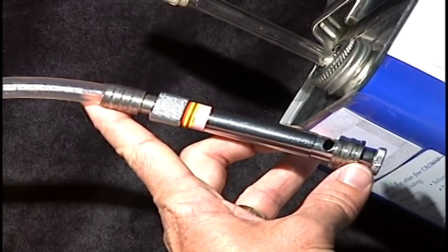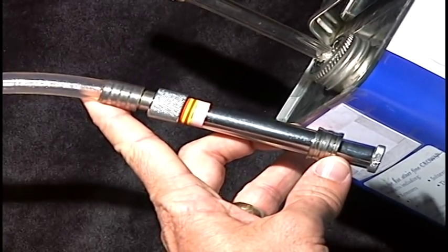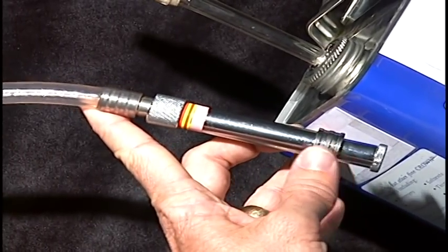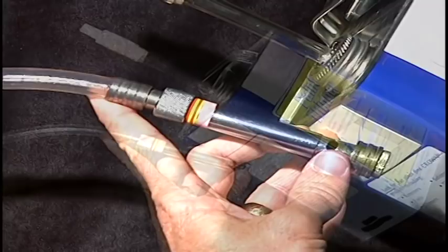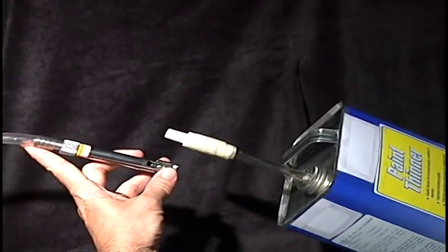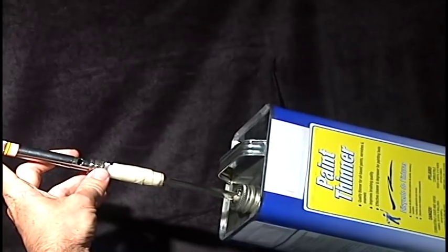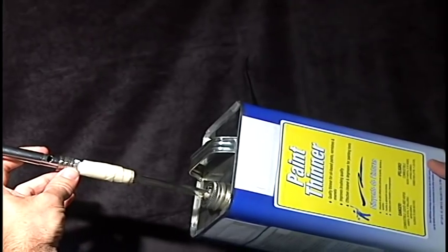It's when I close this valve over that little opening there that the full power of the suction machine will be applied to the inside of the can. So I'm going to open up the valve right now. I'm going to place the suction tubing on top of the can. And you can hear the can was already starting to make a little bit of a change.